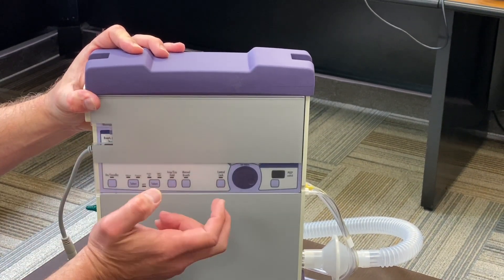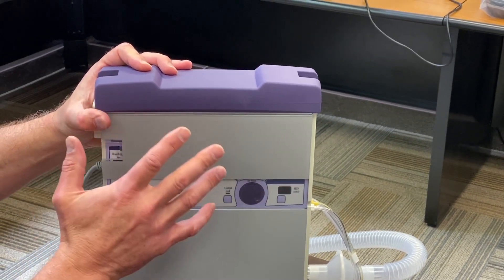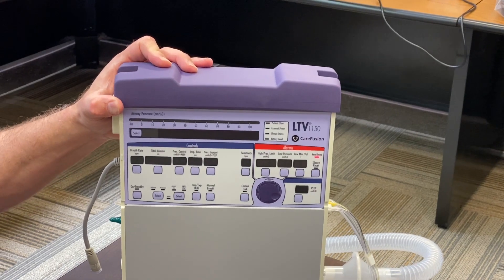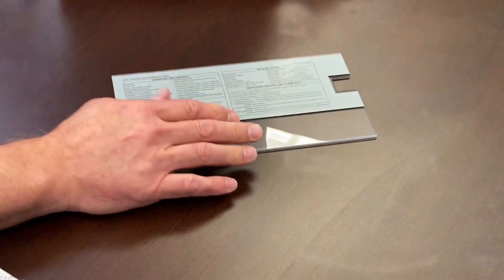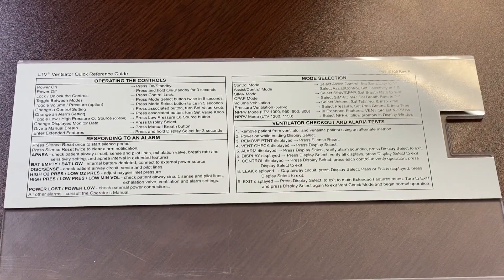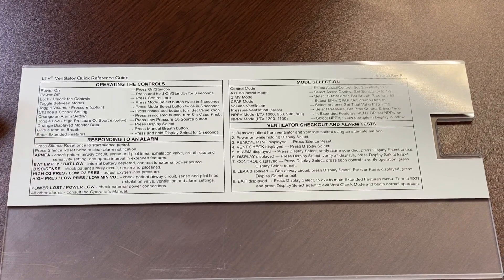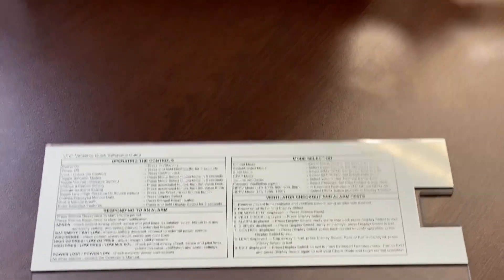Getting to the front of the LTV, this panel will normally be slid into place here. Most therapists put this in place so parents aren't seeing all the additional numbers. When you remove it, it has instructions — everything on the ventilator: all your operational controls, responses to alarms, mode selection, and how to check out the ventilator.